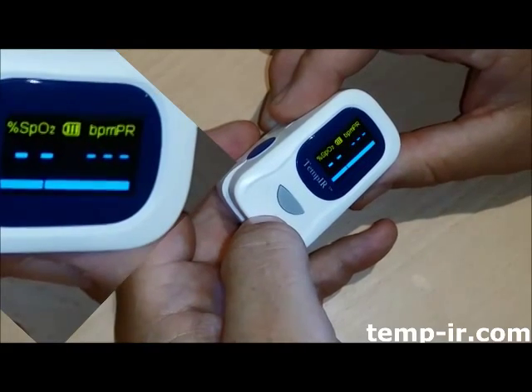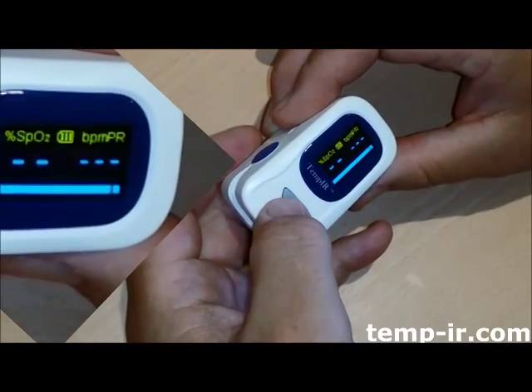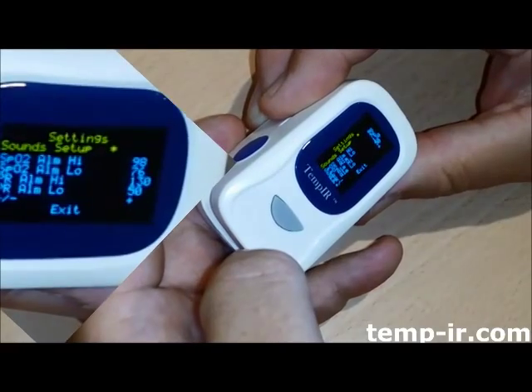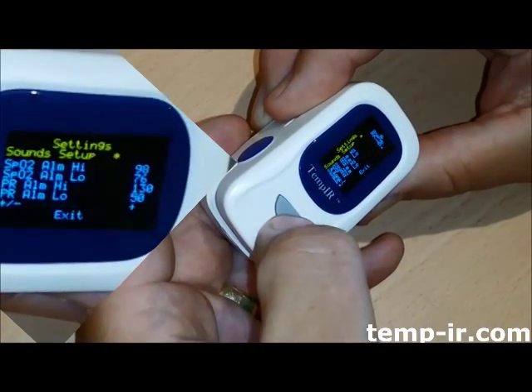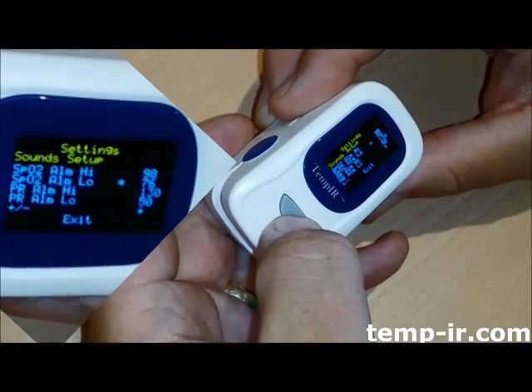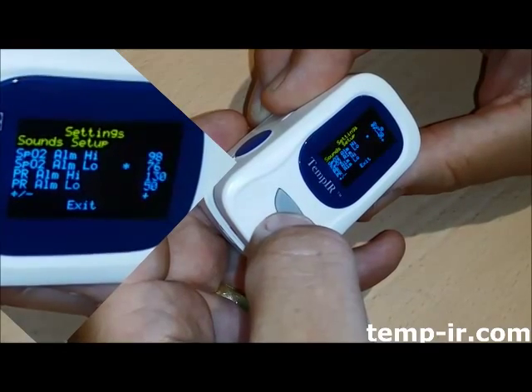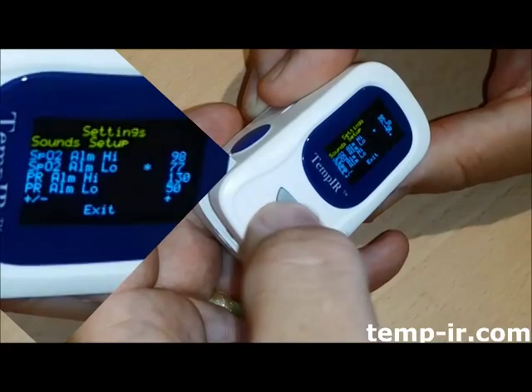Another long press will take you to the menu. From there you can select the alarm adjustment menu. From here you can adjust the alarm for SPO2 and pulse high and low. Please take note: high and low settings can vary from person to person, so if you decide to use this feature it is best to seek medical advice before.